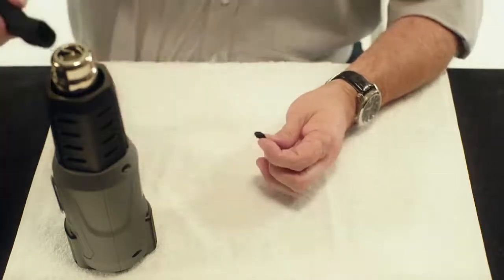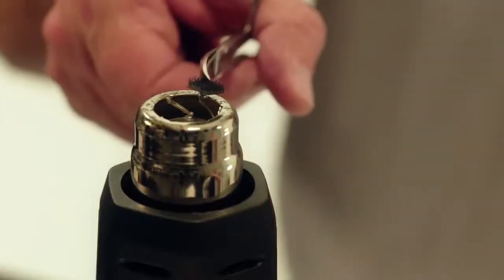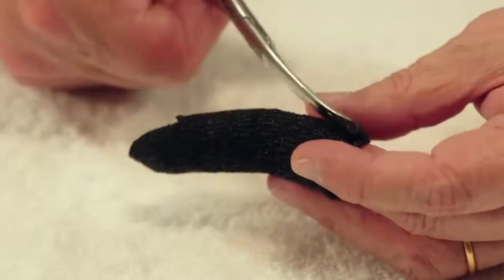Briefly heat the Orficast and the glue of the self-adhesive hook tape and stick them together.